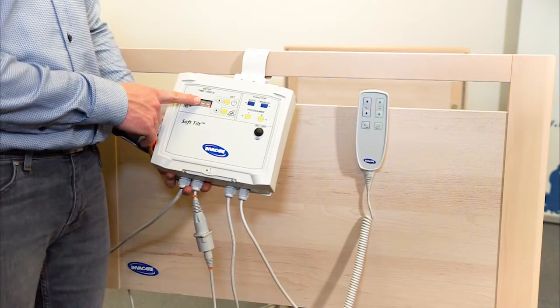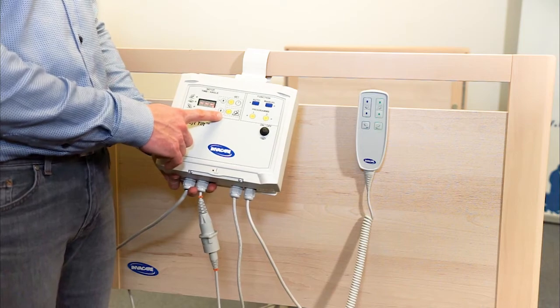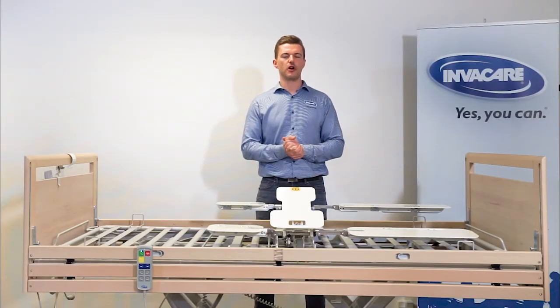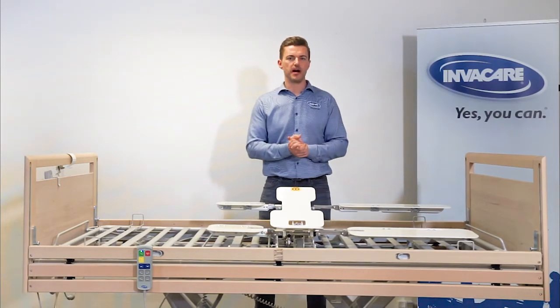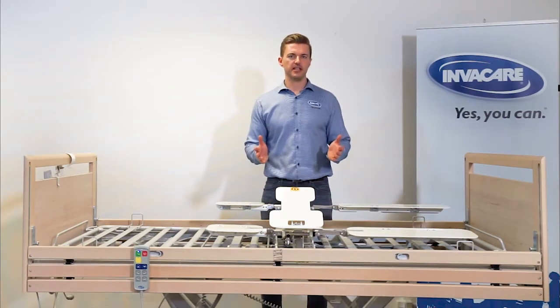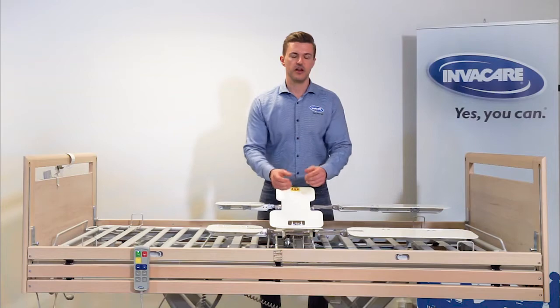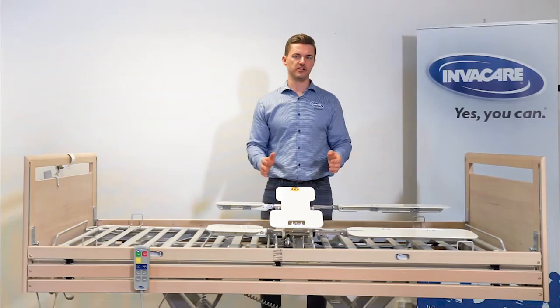Here you have the setup panel. This is where you define how many minutes the patient should lie on the left side, on the back, and on the right side. It's also where you define how many degrees SoftTilt should move in the automatic mode. In automatic mode, SoftTilt always repositions with both wings active at the same time. This is to minimize shear and to optimize comfort for the patient. Depending on the settings, the side that the patient is lying on after being repositioned will either go flat or stay slightly elevated. We always recommend a slightly elevated side to give maximum support for the patient.